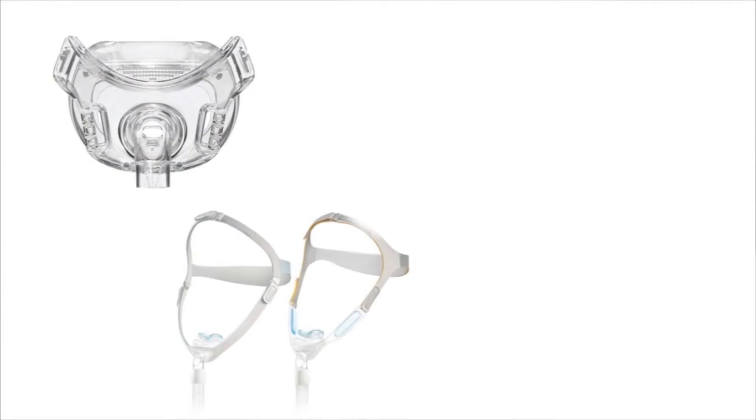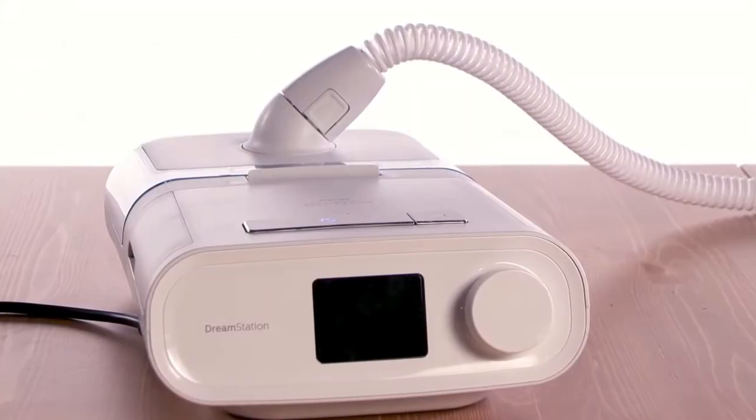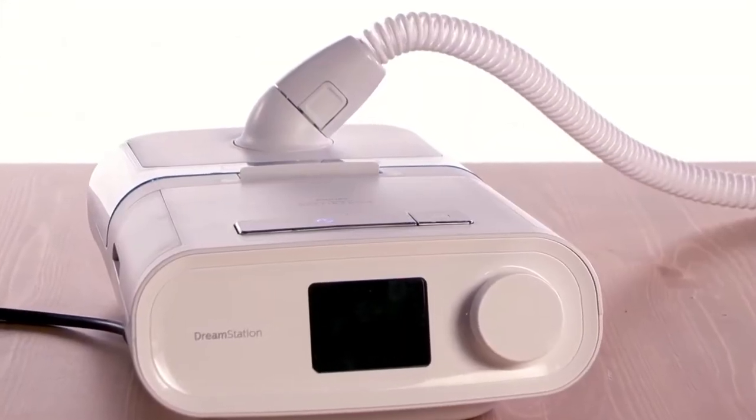To receive therapy, you also need a mask and headgear. To allow for individual preferences, a variety of styles are available. It won't take long to get your device set up.